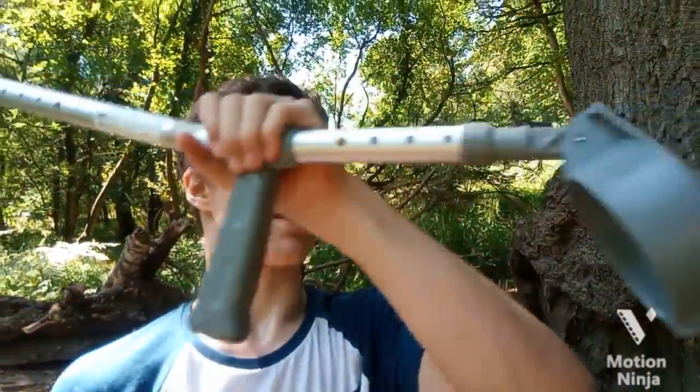So basically in today's video I'm going to be showing you how I use these crutches — usually not these specific ones, I've got a bit of a story time to tell you about them — but basically I'll be showing you how I use crutches with my disability. Let's get into it.